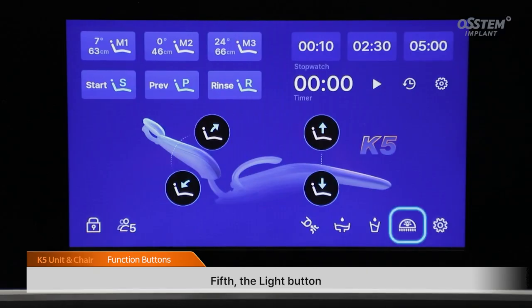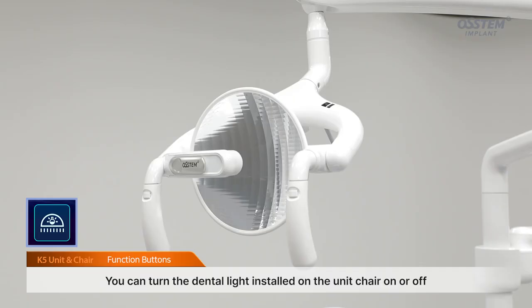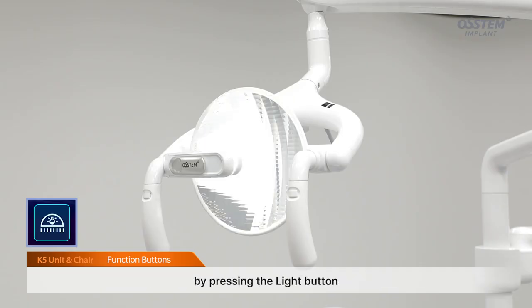Fifth, the light button. You can turn the dental light installed on the unit chair on or off by pressing the light button.